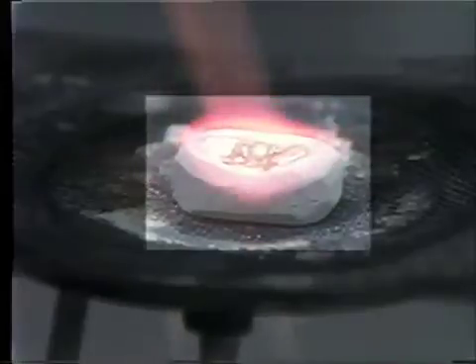If you get this hot enough, the solder will flow as soon as you touch it, and it will not go beyond the areas where we have it antifluxed. We're soldering with a propane torch and the heat is not the same, so we just want to reheat this joint a little bit to make sure the solder flows all the way around the joint. Now that's completed — we'll just let it cool.